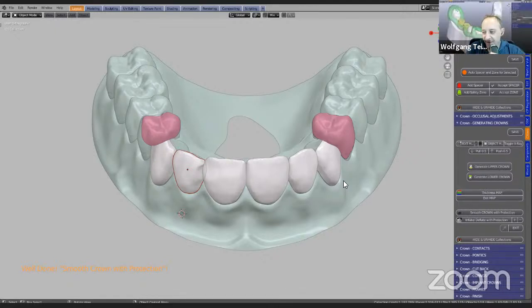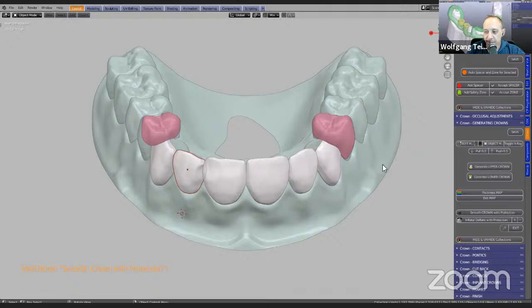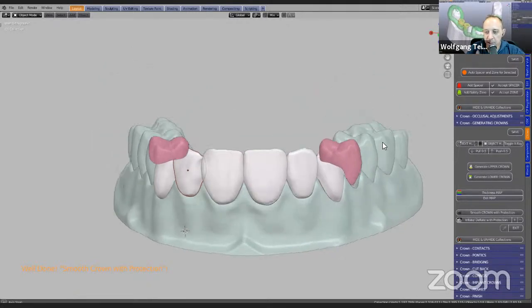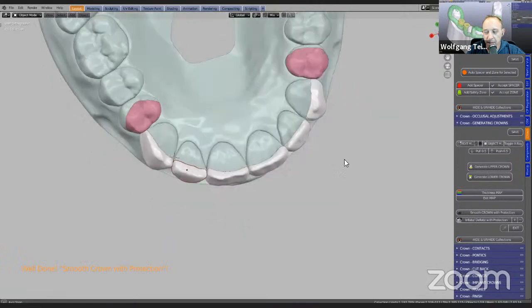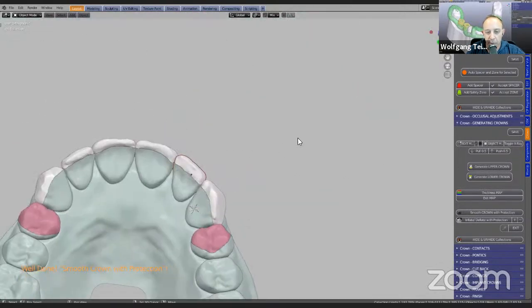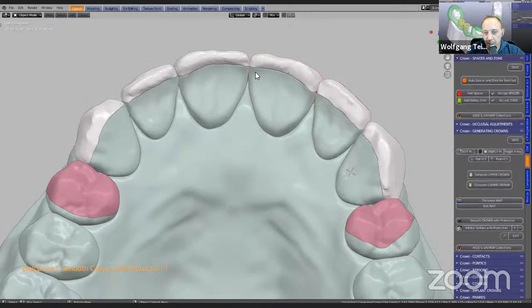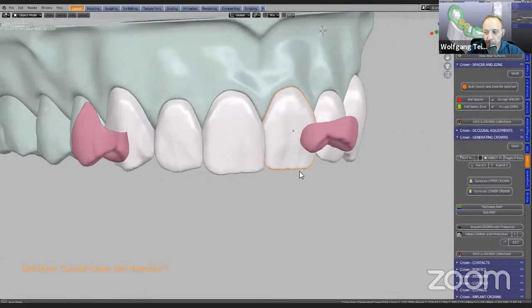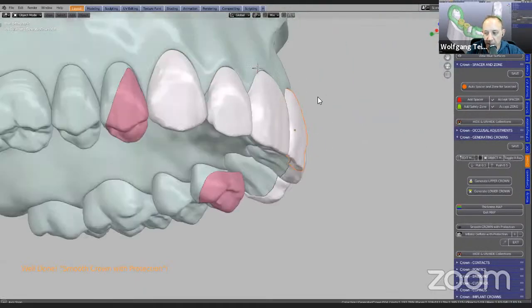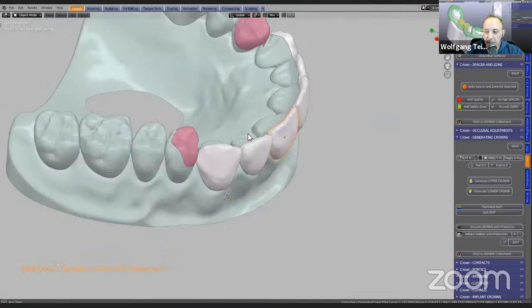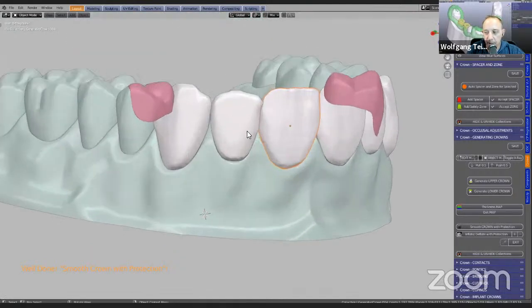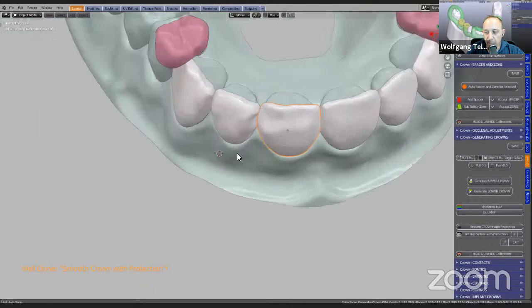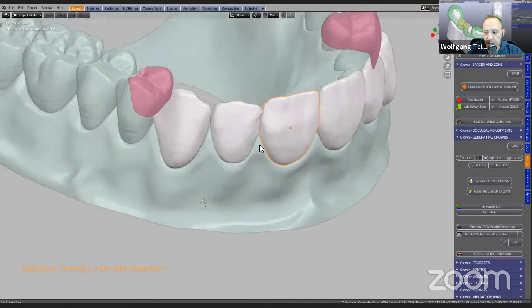Now contacts are finicky. Wolf, can you tell me about veneer contacts? Well, if we're talking about working with veneer contacts in the laboratory the conventional way, as most people know, it's very delicate work — you're using carbon paper and cutting and trimming things. So we've got a special interproximal cutting tool — it's like a cutting plane that you can insert between the teeth and then cut out the contact. Again, this is adjustable. So if the contacts are too tight next time around, you can make the gap clearance a little bit larger.